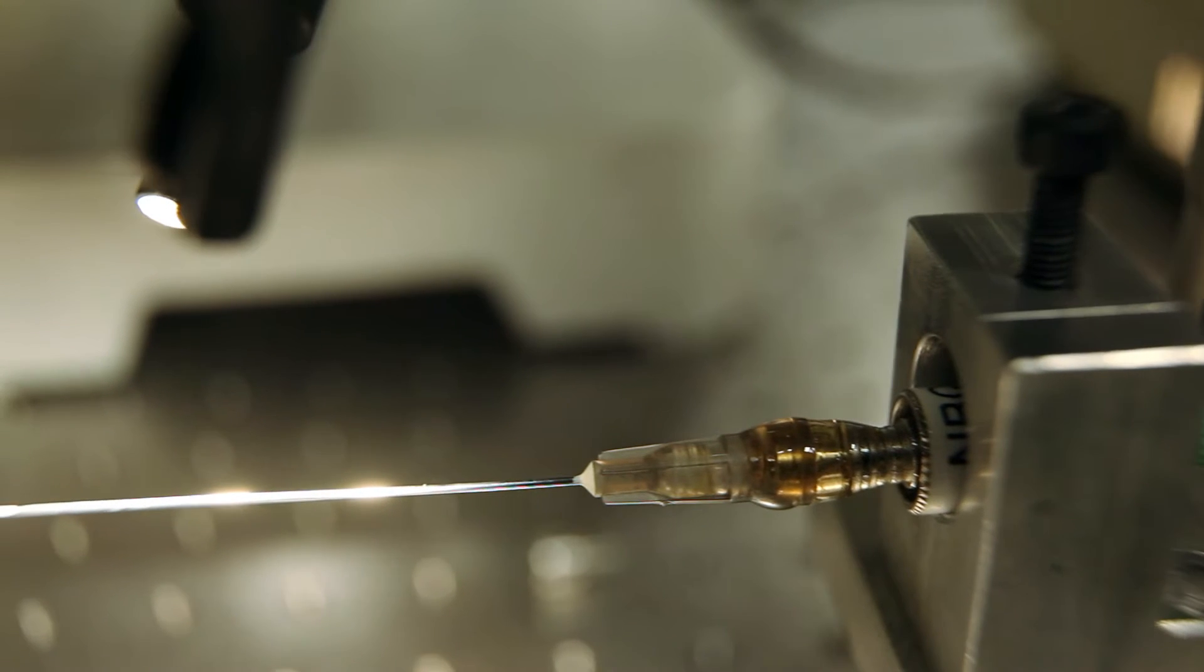The way this thing works, it's a lot like ultrasound, but instead of using sound waves we use light waves. And because light waves are a lot smaller, it means we can actually see much smaller things, and that's why we can see small traces of cancer.